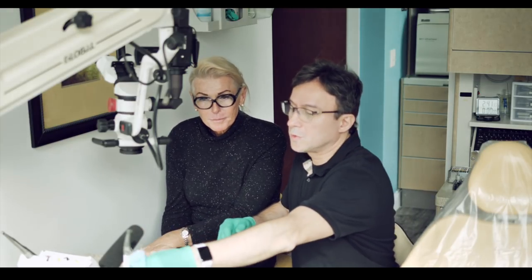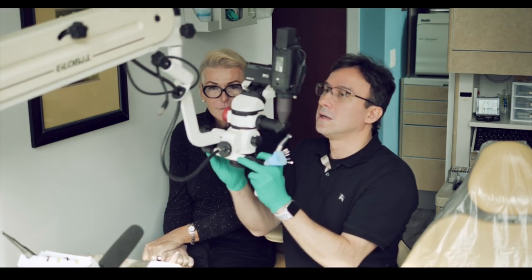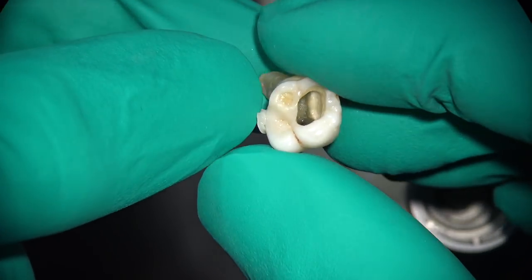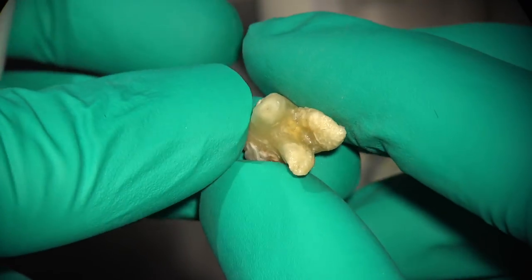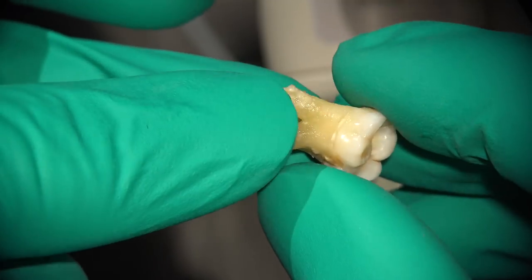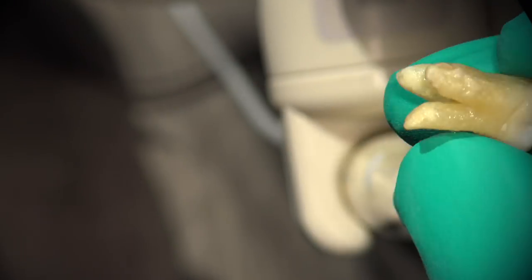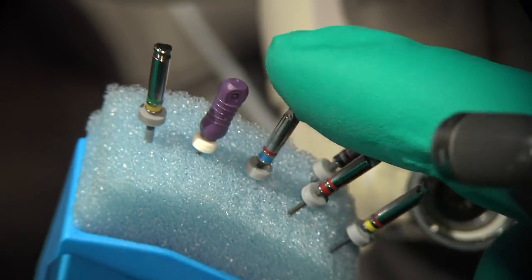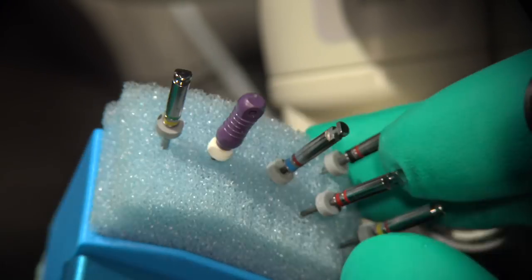So that's great, Annie. It was your suggestion, so we just test that out in a little bit of a curvature and see what happens. We have an extracted molar here, and I'm going to basically try to demonstrate this on. So here's our molar, and as you can see, it's got some kind of funky looking roots, looks like a little tripod, Annie. It's a totally funky distal bumper, and that is a clinical term, by the way.